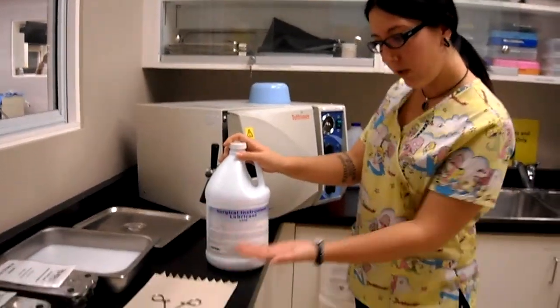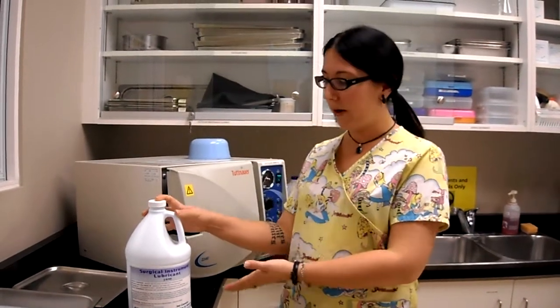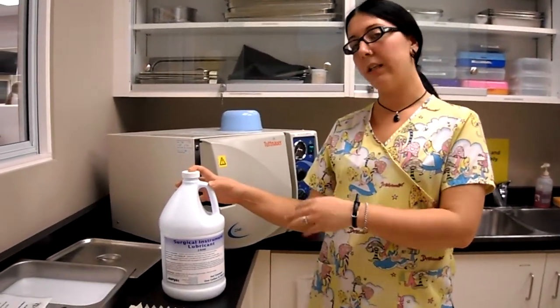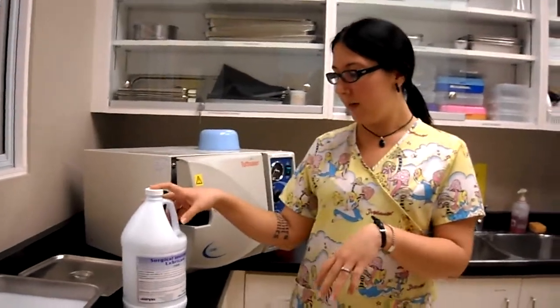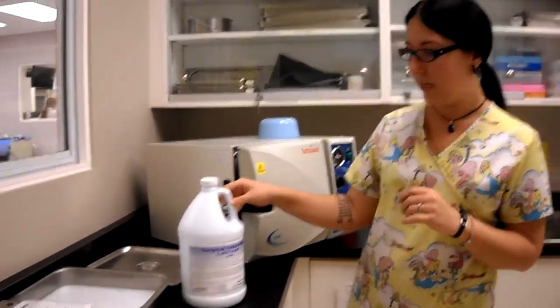So this is our bottle here. Depending on the facility, sometimes you can dilute it with one part surgical milk to six parts water. It is used to keep box locks lubricated and things like that.